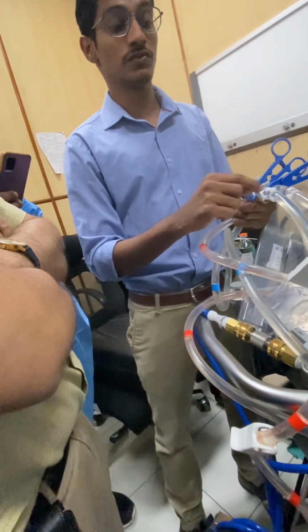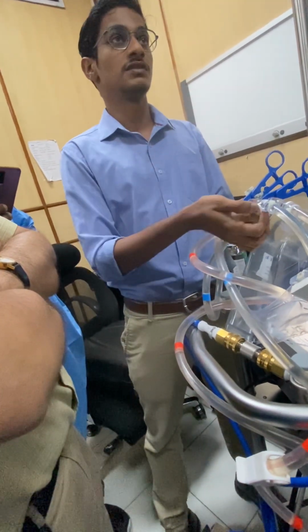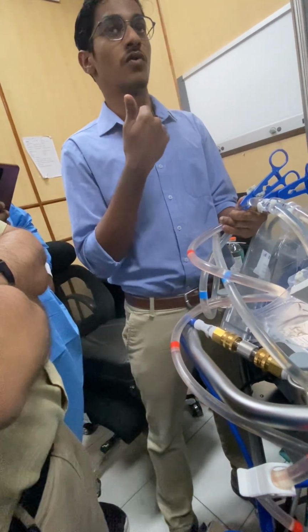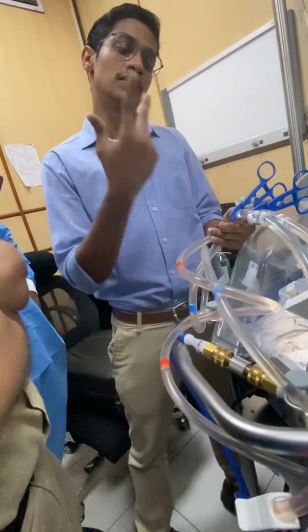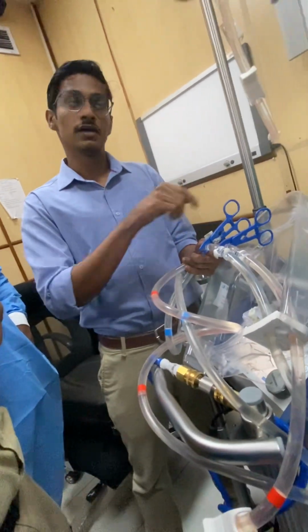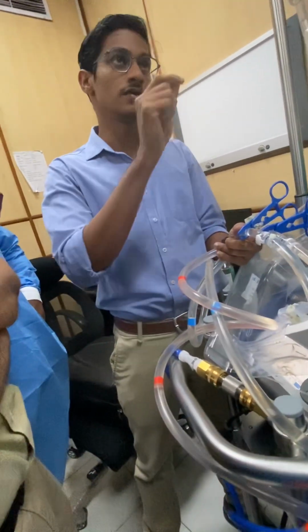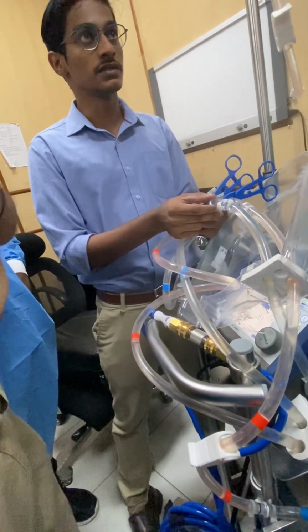Using these type of connectors for cannula is not recommended, because this can come out, or any small cracks, anything can happen. So the scissors are for cutting. Scissors will be provided in the kit. If you are not comfortable with that, you can use blades. Cut this. You will have 2 free ends.